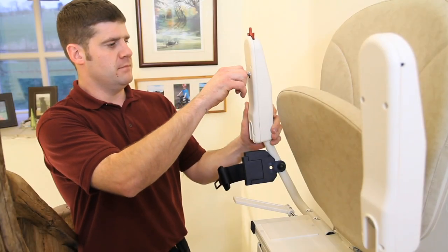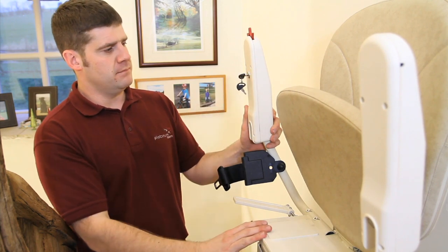Finally, raise the chair arm and insert the key into the key switch. Turn the key in a clockwise direction until it stops in a diagonal position.